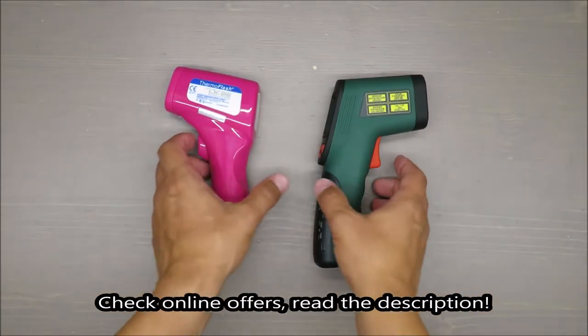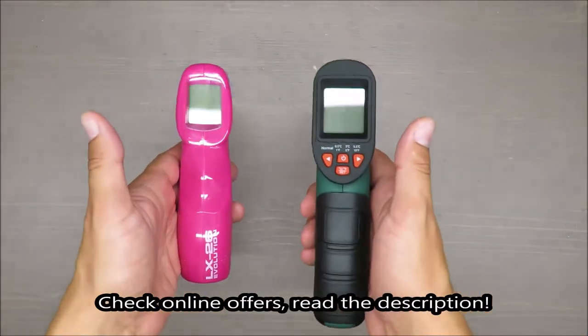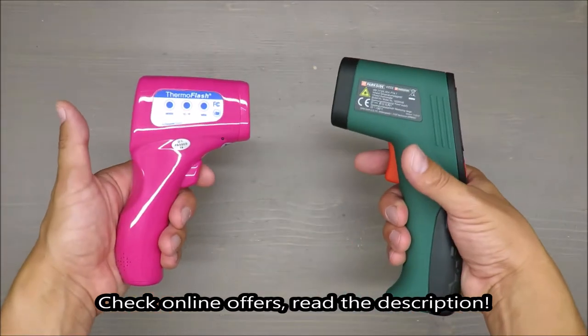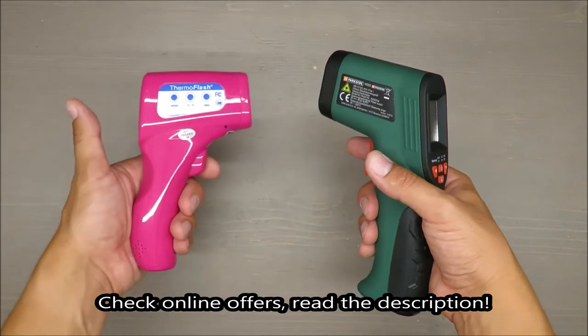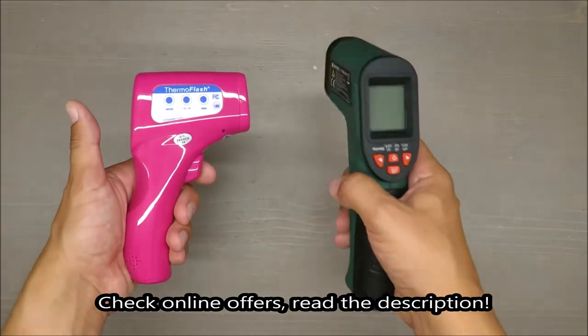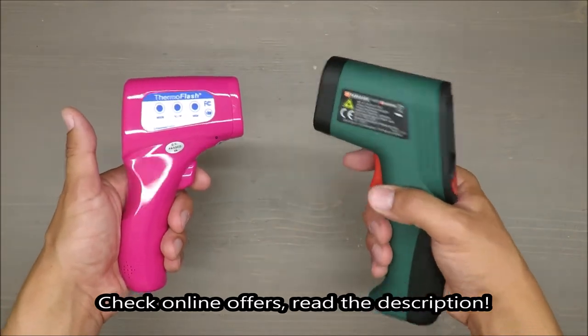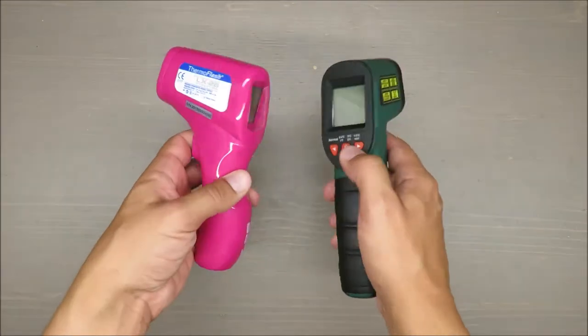Hello everybody, this is Out of the Box Unboxing. In today's episode, I'm going to make a side-by-side comparison and review of a ThermoFlash regular thermometer and an infrared thermometer from Parkside, available at Lidl.